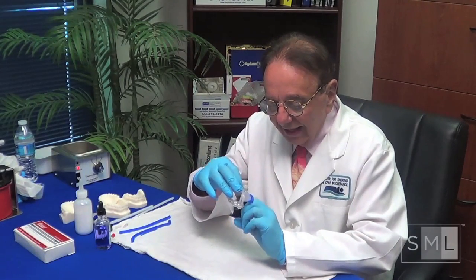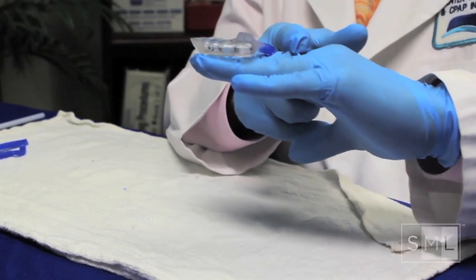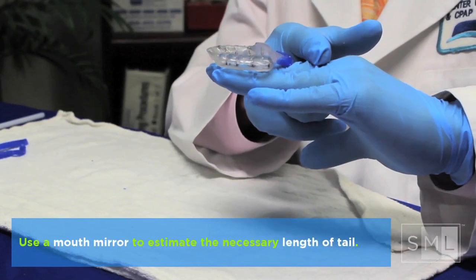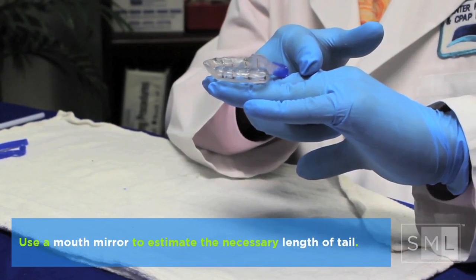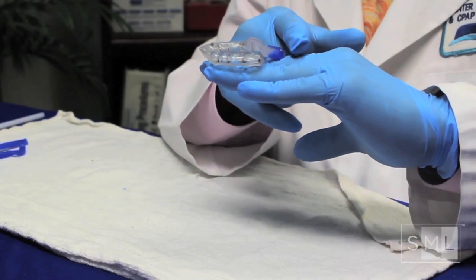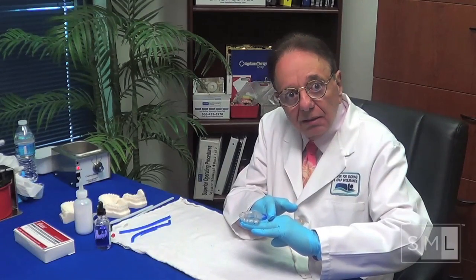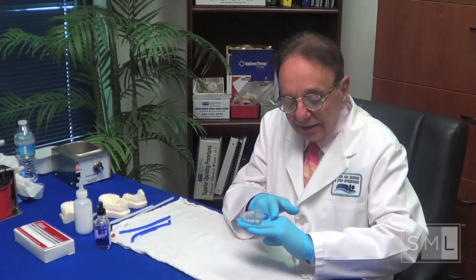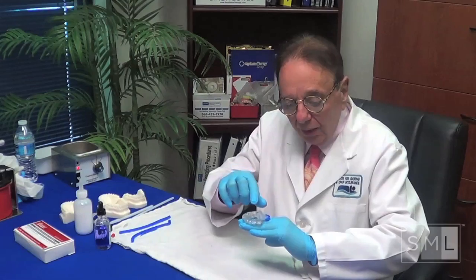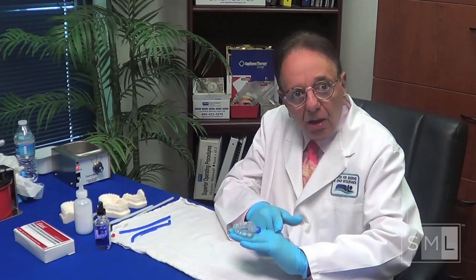With a medium-sized tongue, we're going to add parallel to the surface of the tongue — add across. If it's a short tongue, I'm going to add down. So if we're all the way to the back of the throat, we're going to add and go down — we're going to depress the tongue and open the airway with depression on a short tongue. For a medium-sized tongue, we're going to go back. And for a long tongue — I get some people with very long tongues — I've made some tails that go back shockingly far.